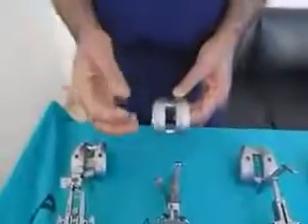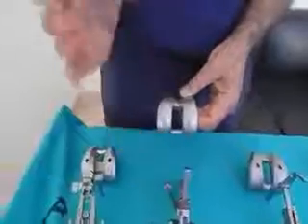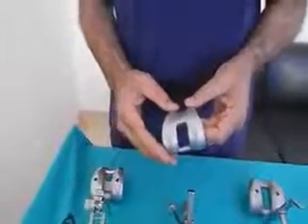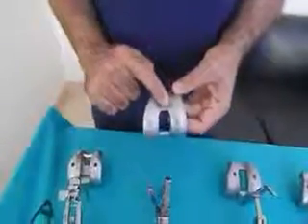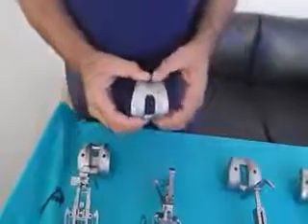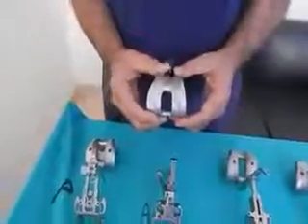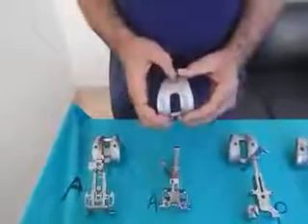Now let's come to the second knee, which is Zimmer's LPS Next-Gen design. Again a very good design, and it has very good long-term data in the Australian registry. In fact, it's one of the best performing knees at 15-year follow-up in the Australian registry. This design has a very excellent small box and very good patellar tracking. Zimmer is one knee in which the patellar problems are very less. A study published in Clinical Orthopedics and Related Research compared patellar symptoms across all designs and Zimmer had the least patellar problems because of an excellent tracking mechanism and a very good Q angle.